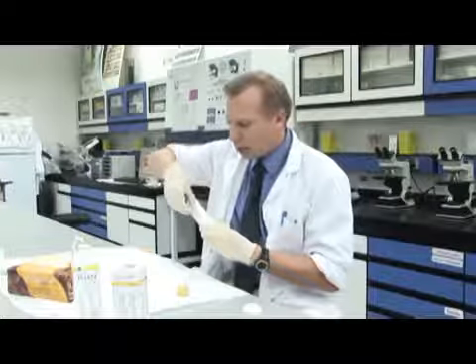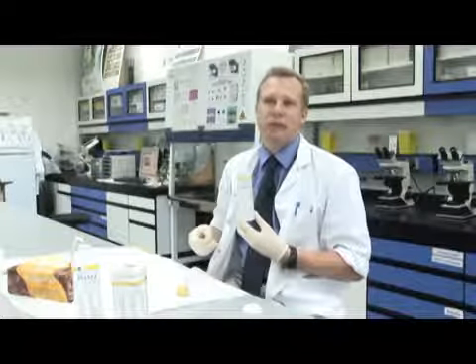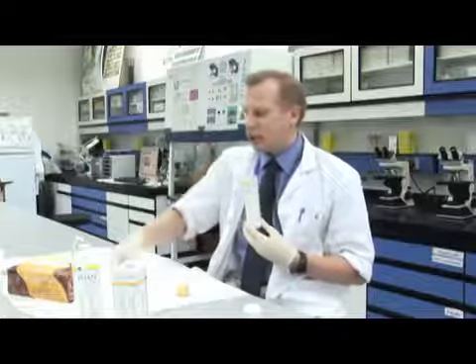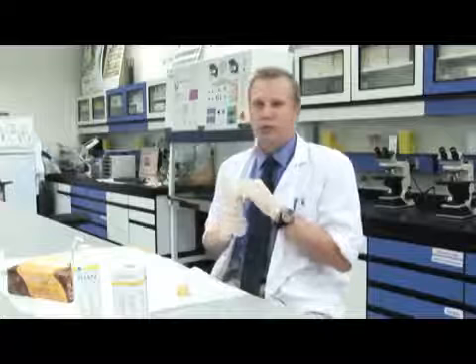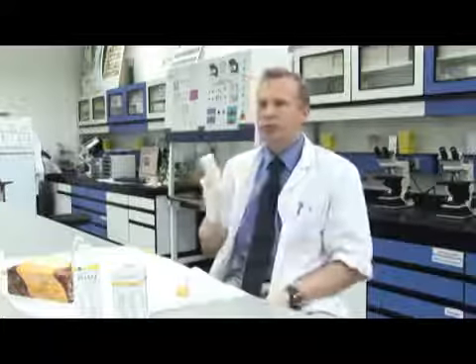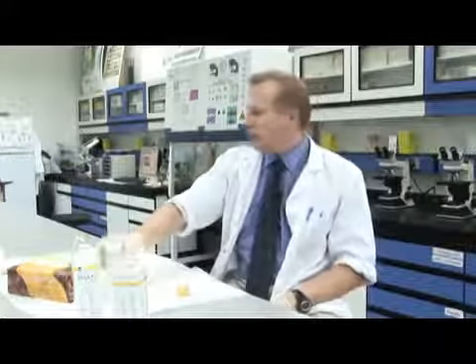Sometimes we bleed a little bit in our urine if we've been exercising very hard, maybe run a marathon or something like that, and that's not unusual. But if there's a very large amount of blood, then we've got cause for concern and we'll do further tests. It's very useful as a non-invasive test. We can easily get a urine sample and run a test, and we'll know in a few minutes if there's a problem, and then we can do other tests. And that's basically how the urine dipstick analysis test works.